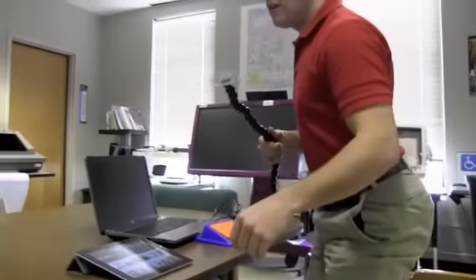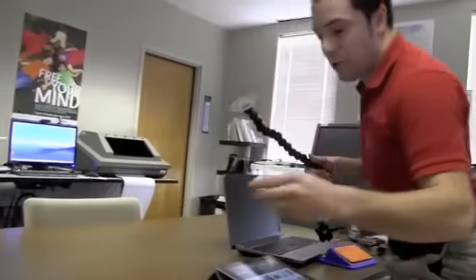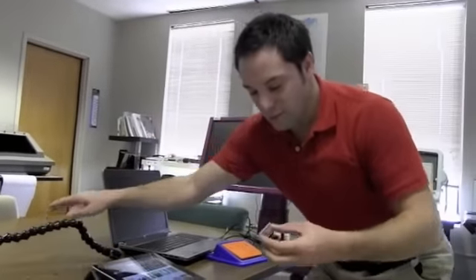This also came with it. To show you what the Velcro looks like, we've got two pieces of adhesive that come together. One piece goes on the iPad, the other piece goes on the clear plate, and they're connected.